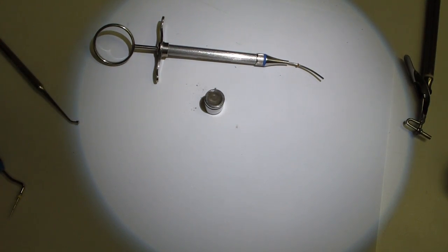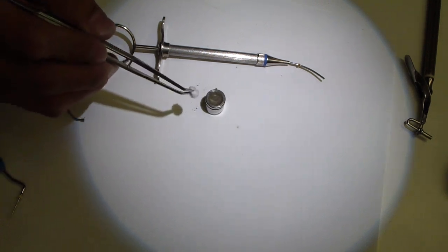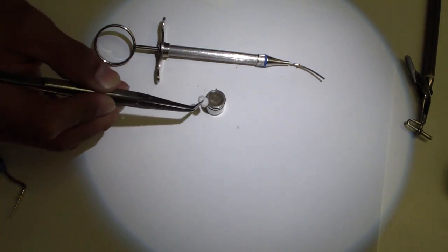The best, in my experience, the best way to utilize this material is with a carrier, such as the micro apical system, or micro apical placement system, which you see here.